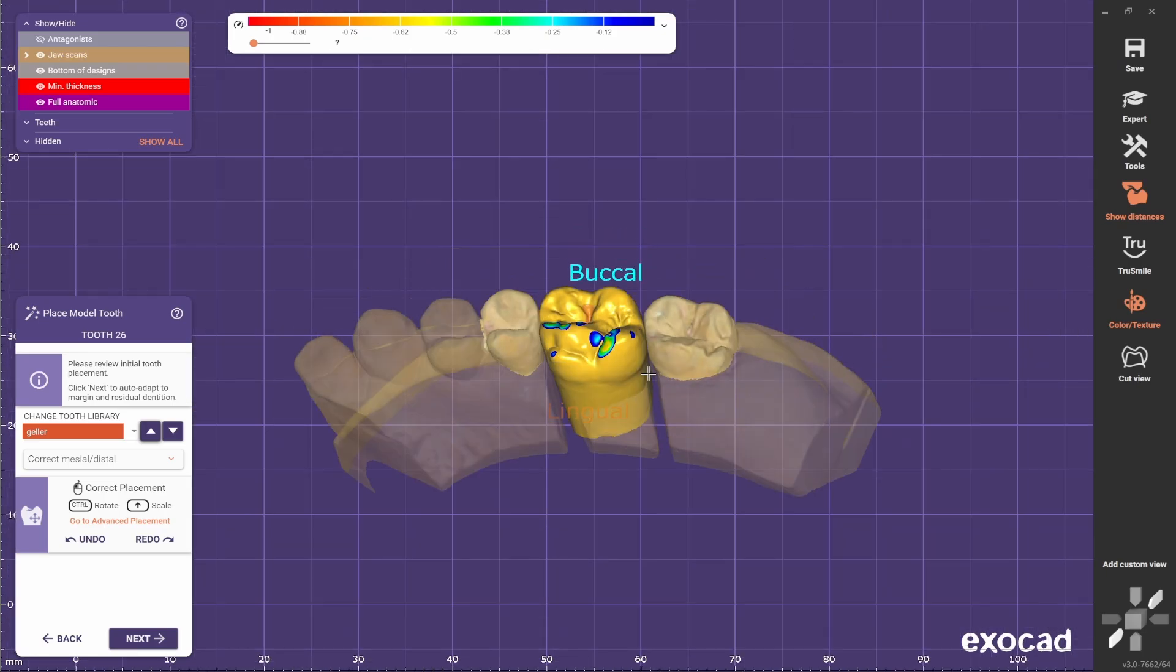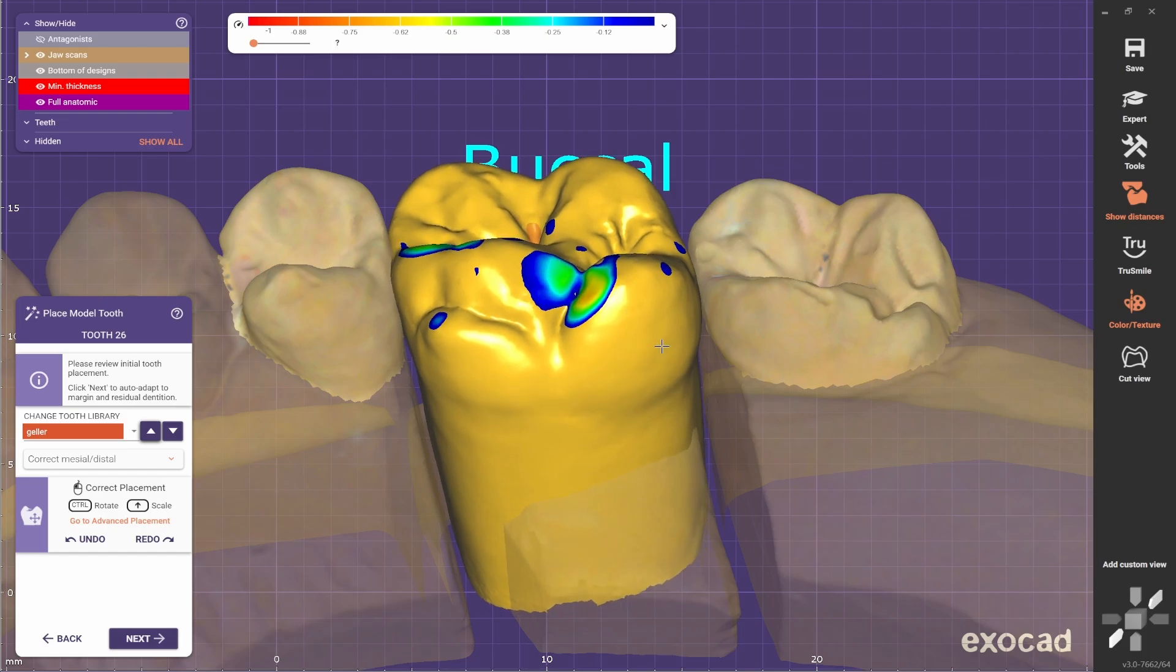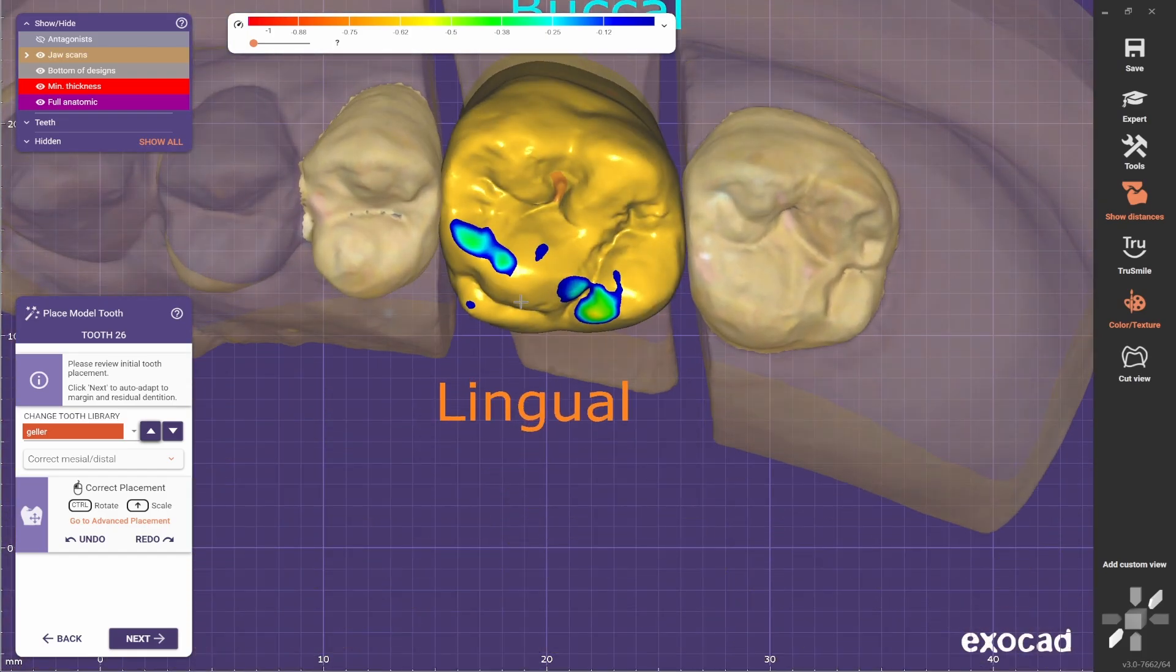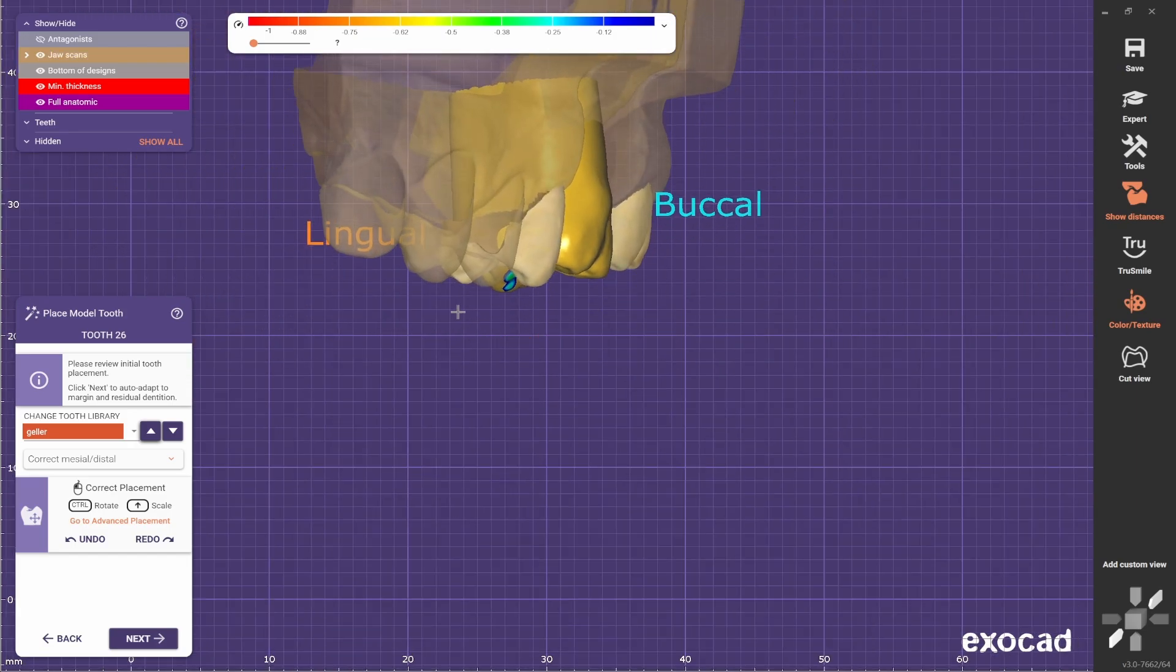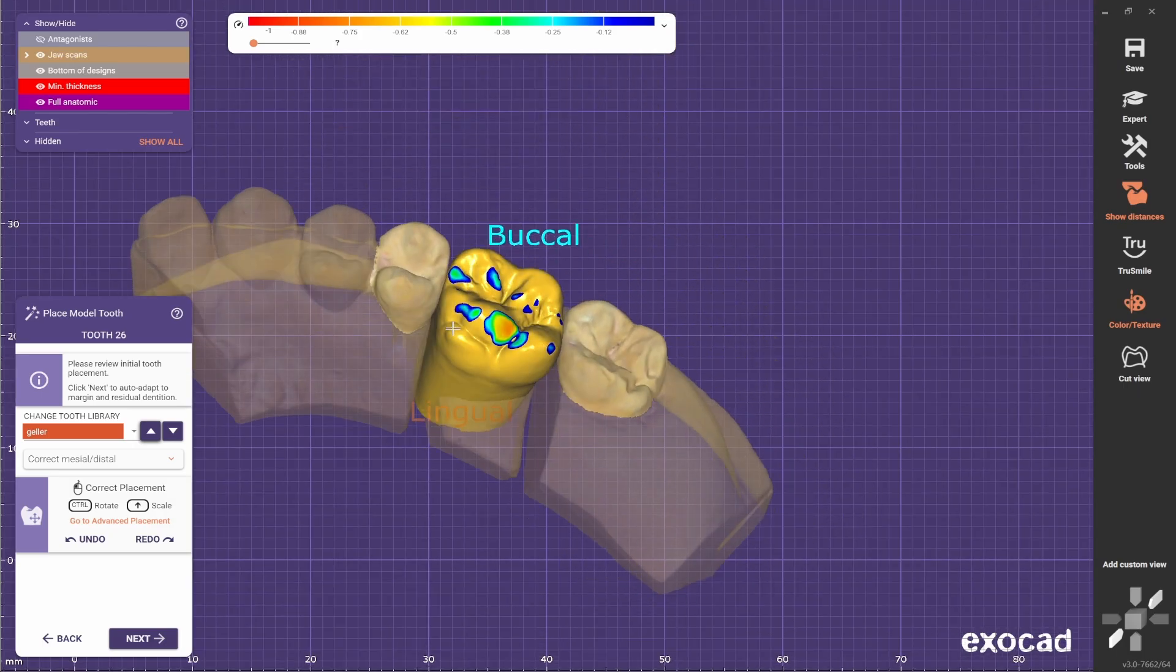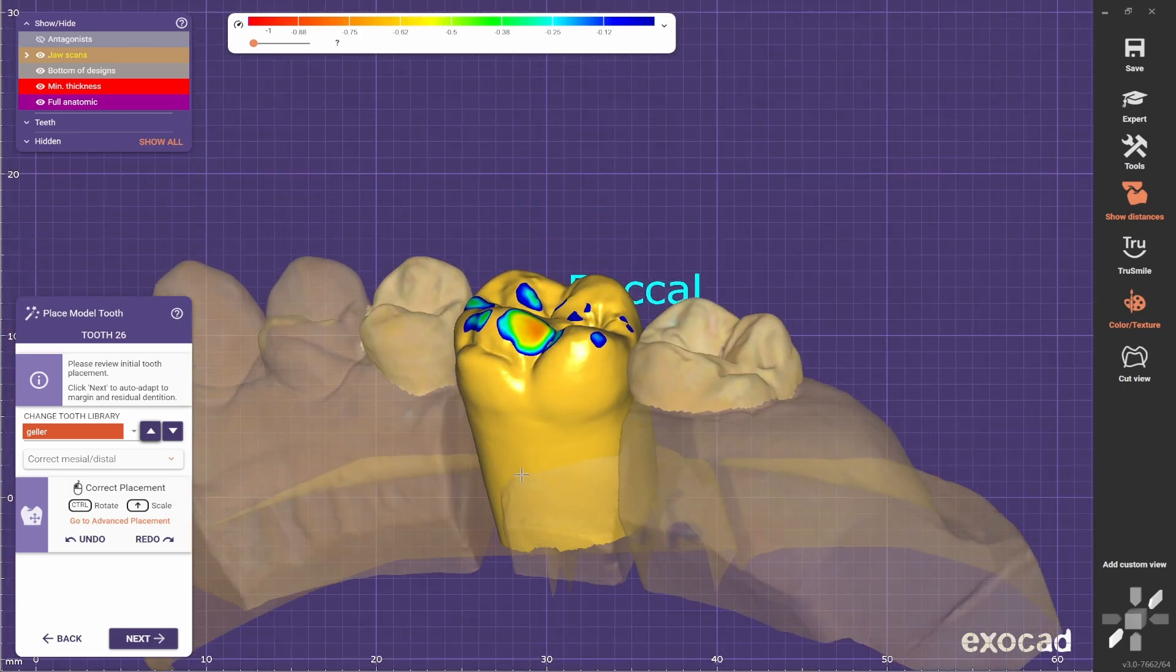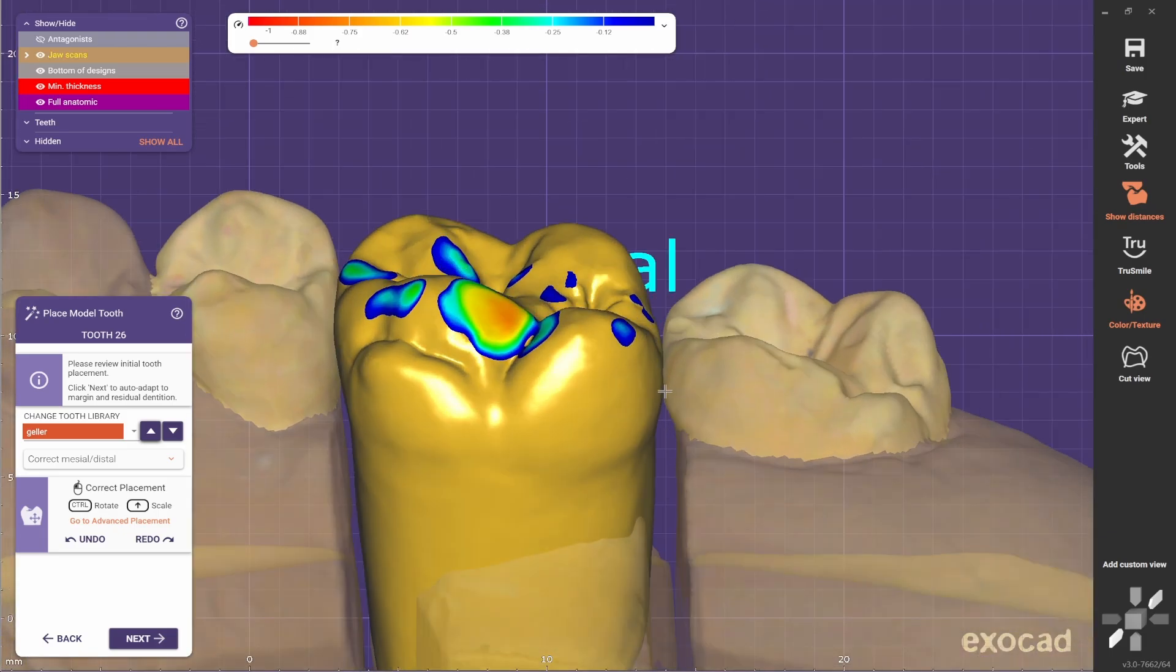At this stage, make sure that you place the crown in the right position because it's going to make it easier on the next stage. So you do fewer changes after you place the crown.